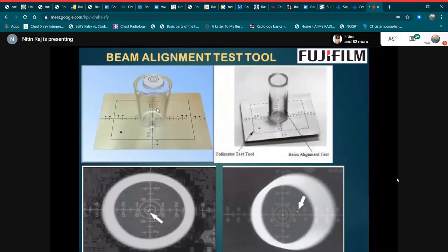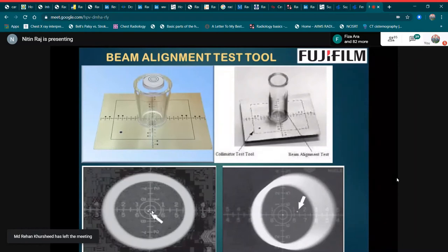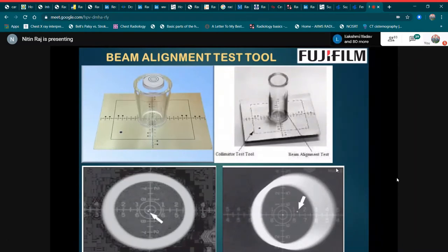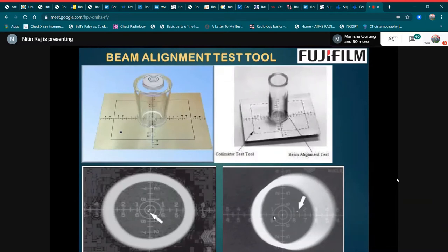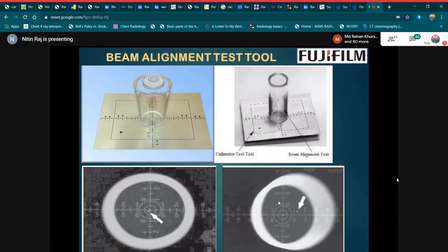This is the tool used for the beam alignment test, showing the steel balls. If the exposed ball image is within the limit of 0.4 inches, the test is acceptable. If it is not within the limits, the image can be distorted and service adjustments may be required.